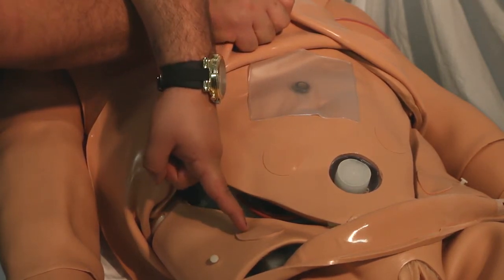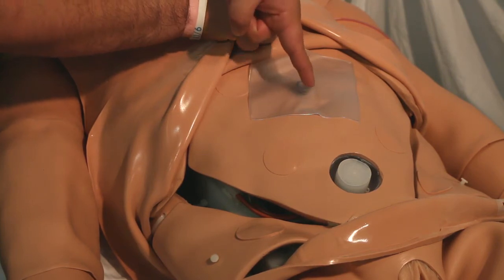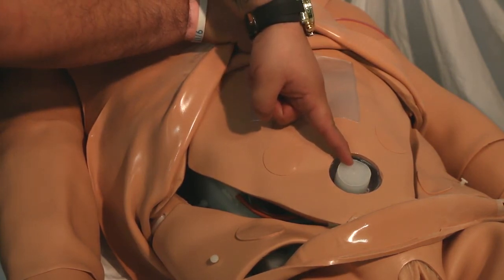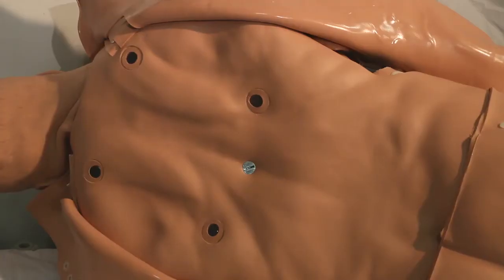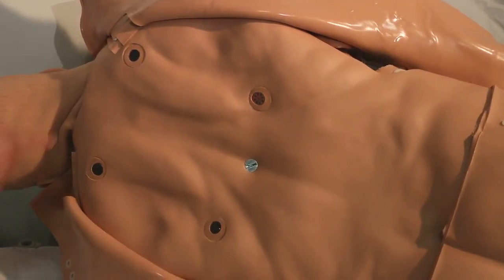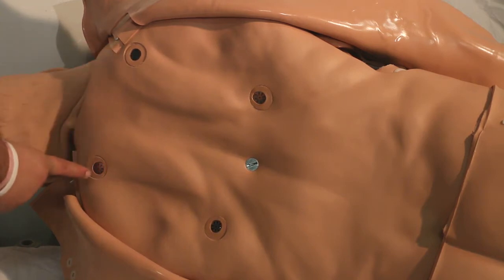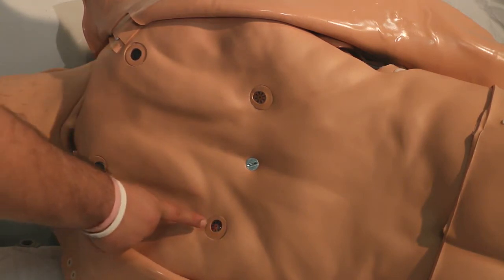The stomach inflation bag and abdomen fill reservoir support chest fluids and catheterization. Complementing the six anterior lung sounds and four cardiac sounds are four posterior lung sound sites.